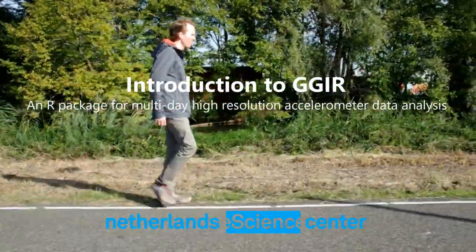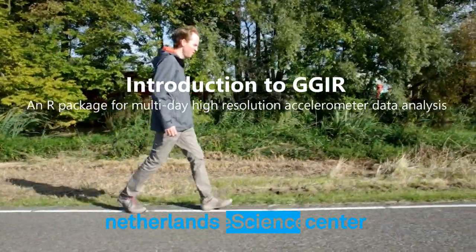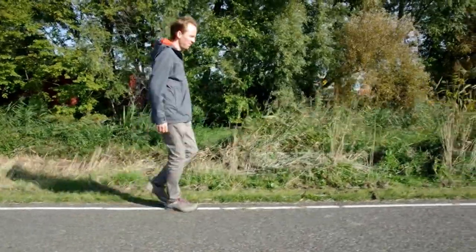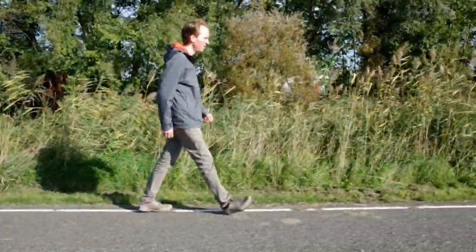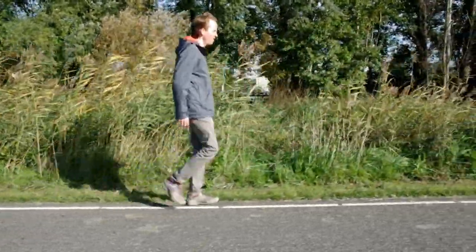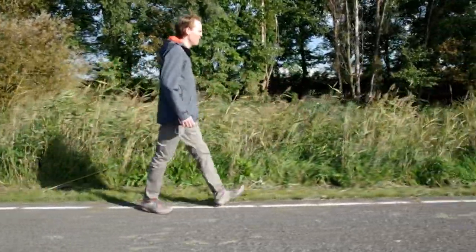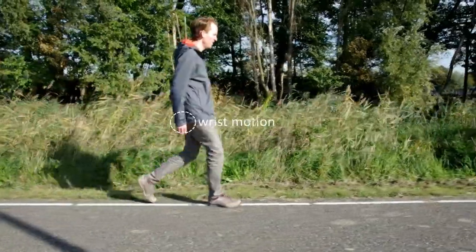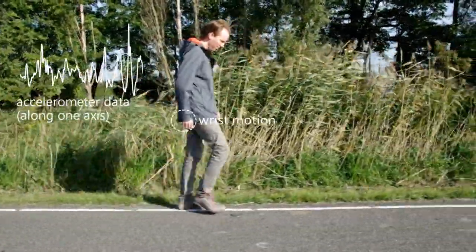In this video I will tell you about an open-source software tool for processing wearable movement sensor data, named GGIR. Physical activity and sleep are important for our health and a popular area of research. Wearable movement sensors, also known as accelerometers, have become the standard way of quantifying human activity and sleep under real-life conditions, with the sensor typically worn on the wrist, and measurements typically lasting for a week or longer.